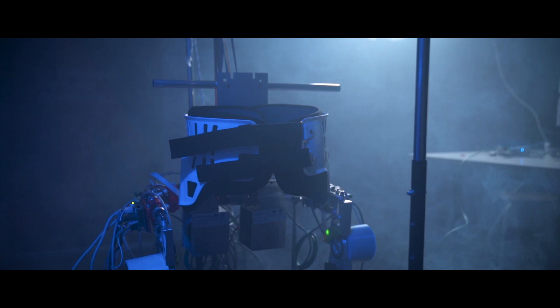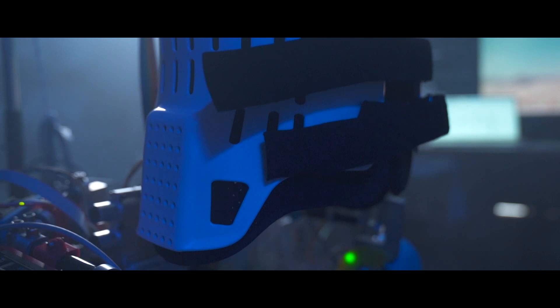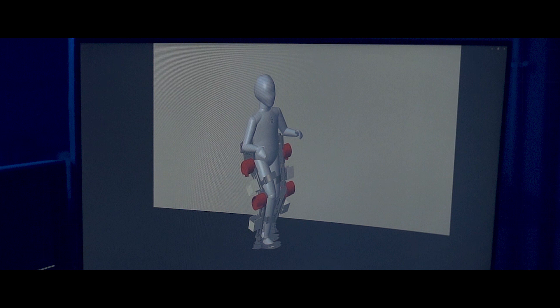An exoskeleton is a mechanized structure worn on the person's limbs. This structure can be used either to amplify a movement, for example for carrying heavy loads, or in the case of a disabled child, it is to re-imprint the movement that is being prevented by disability.